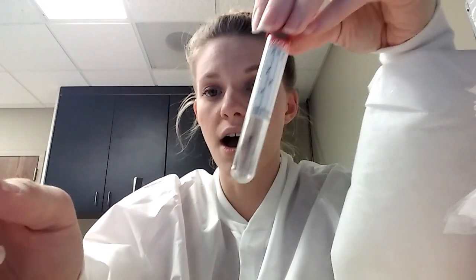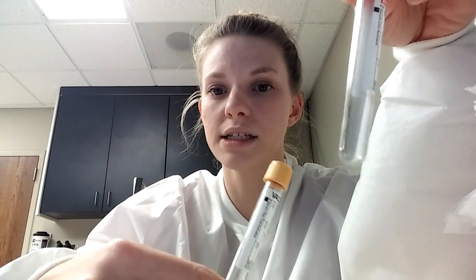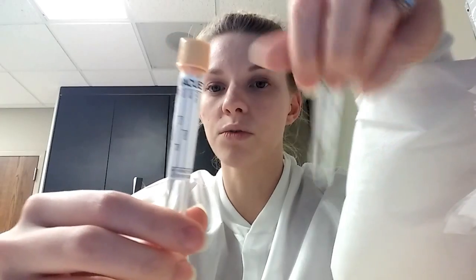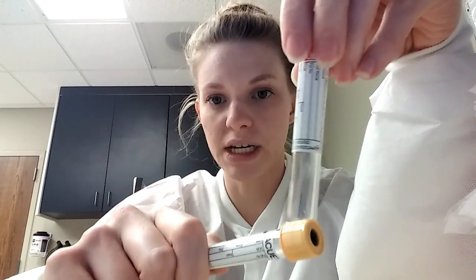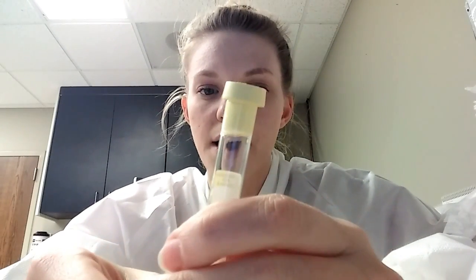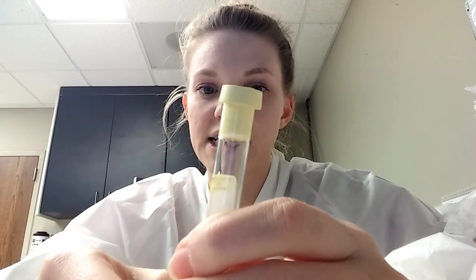The red tube is similar to the gold in that you get serum, because there is no preservative and no gel — it's just a clot. We use this tube primarily for blood banking to test the serum for antibodies. Also some certain vitamin D tests require the red versus the gold, because they think some of the things they're looking for can get trapped in the gel. So they want it without the gel — you spin it down and take off the top.